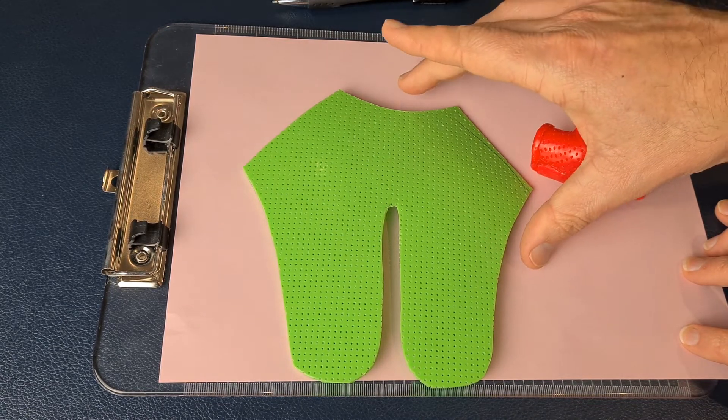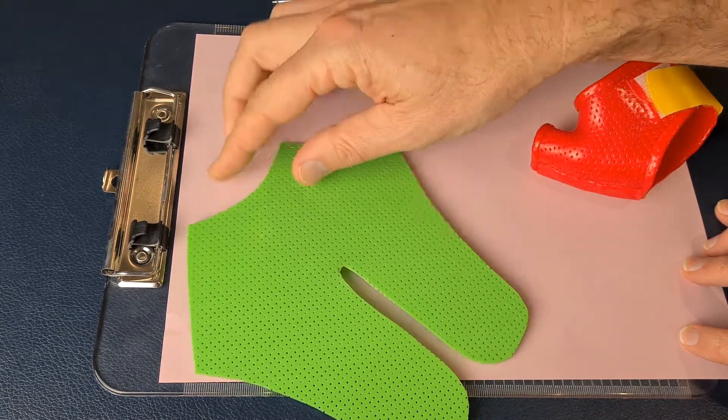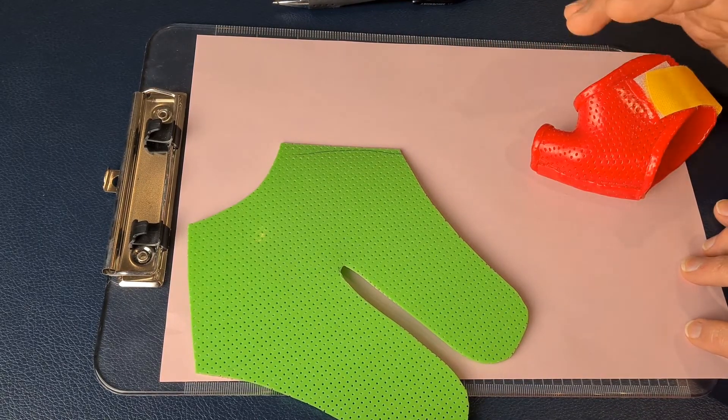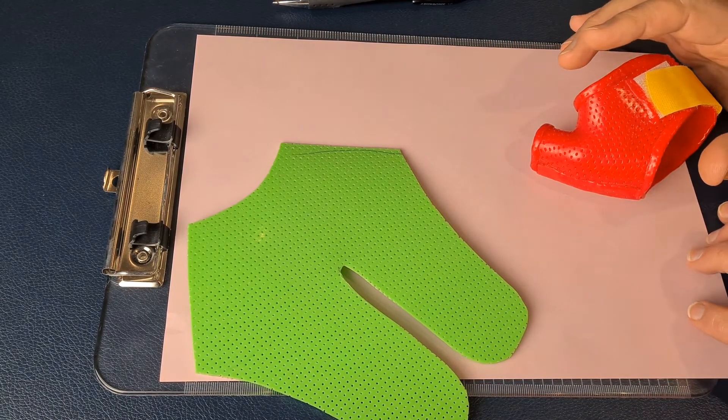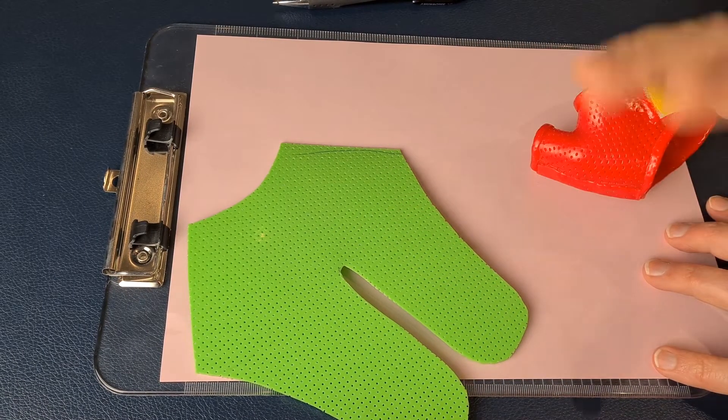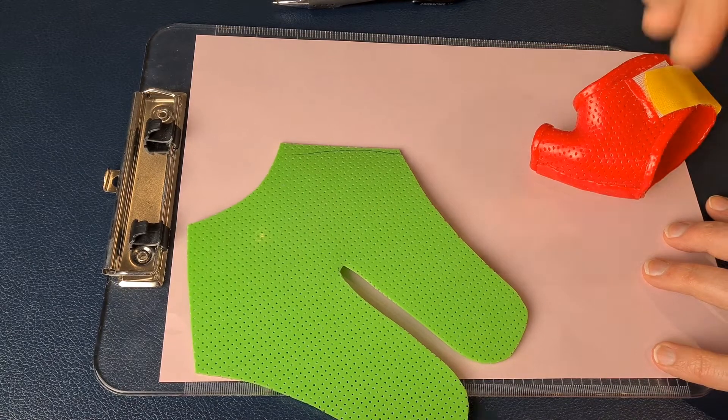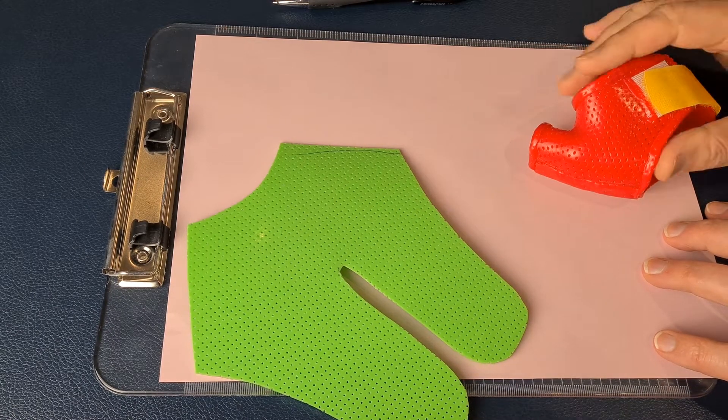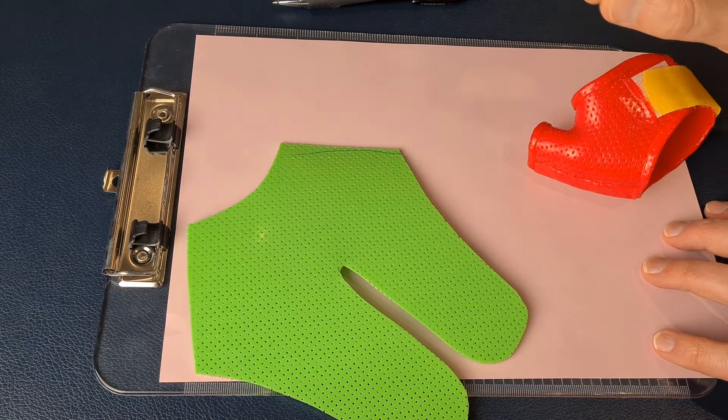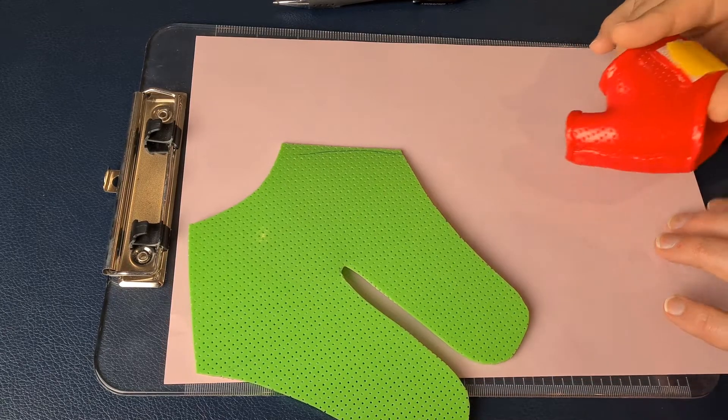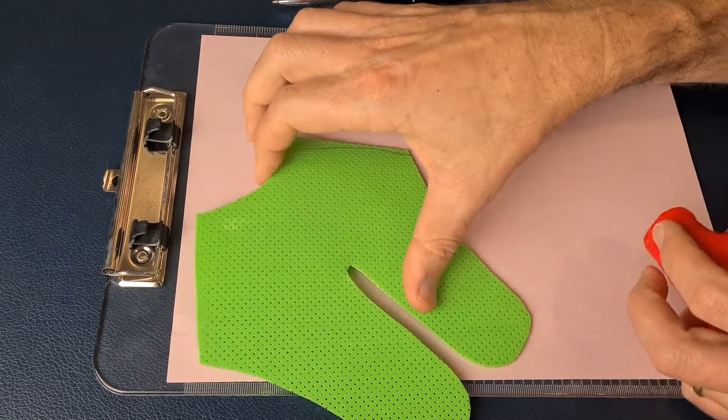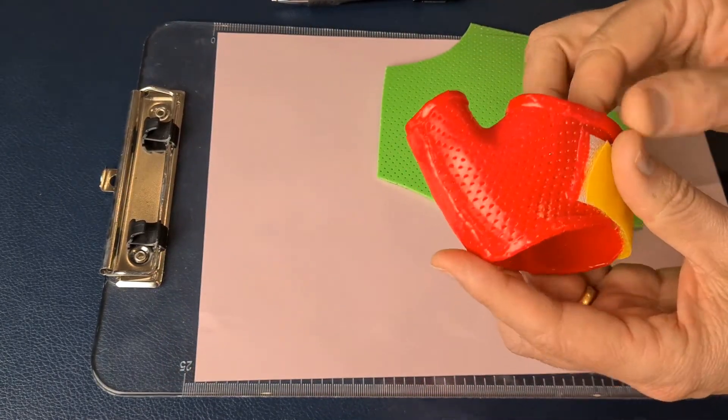But trying to get the sizing right for a big hand or a small hand, I just keep a couple of templates—one for large hands, one for small hands—and you can adjust as you go. The shape of this is designed to fit a hand a certain way to end up with a thumb spica splint roughly like this.